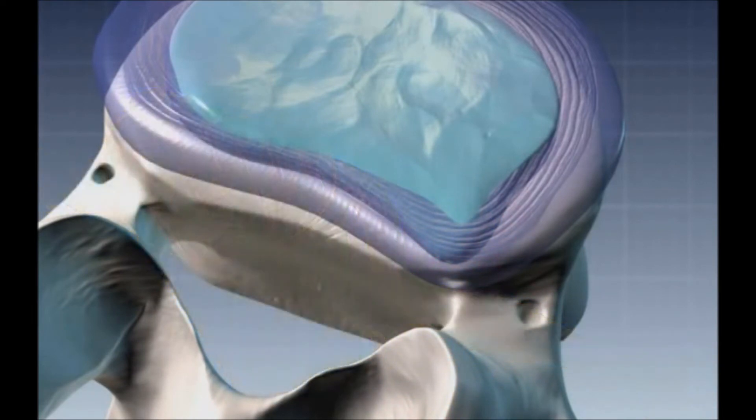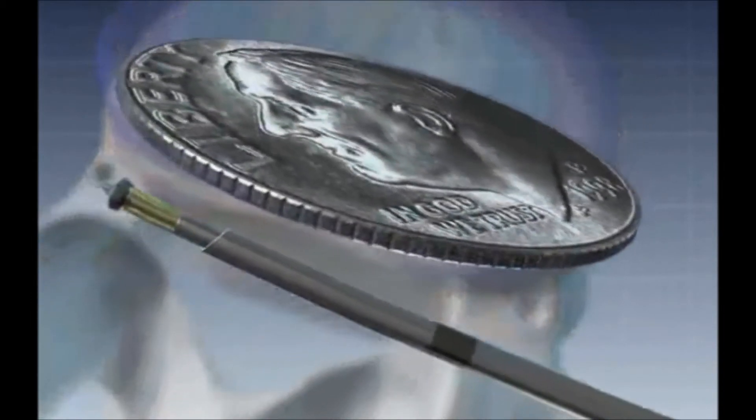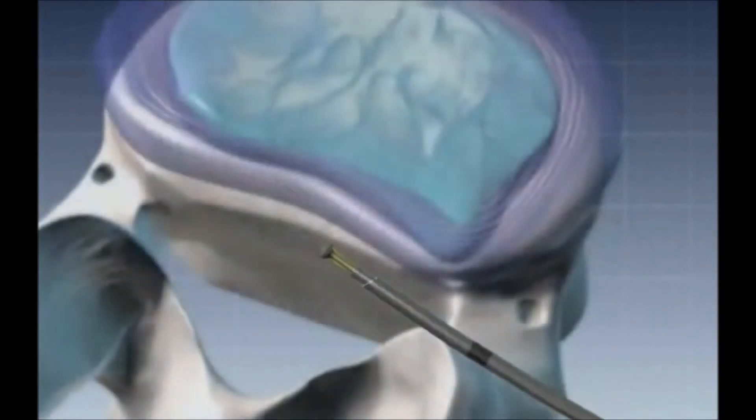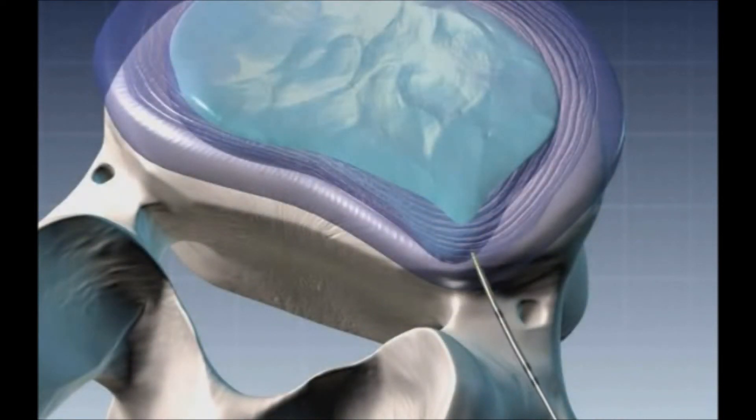Disc nucleoplasty uses a minimally invasive catheter to create an accurate 1 mm pathway into the disc. A micro-engineered alloy transmitter is introduced into the disc.